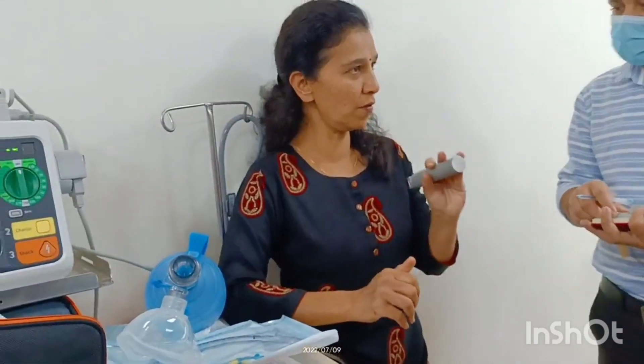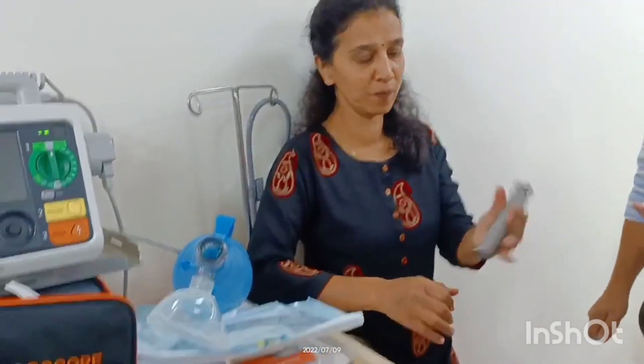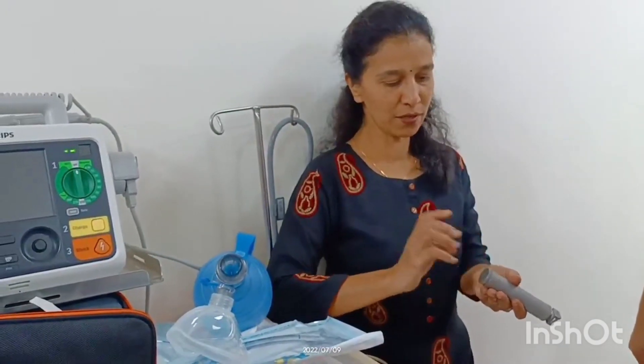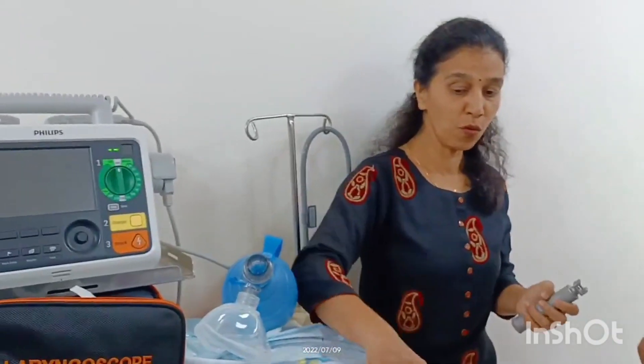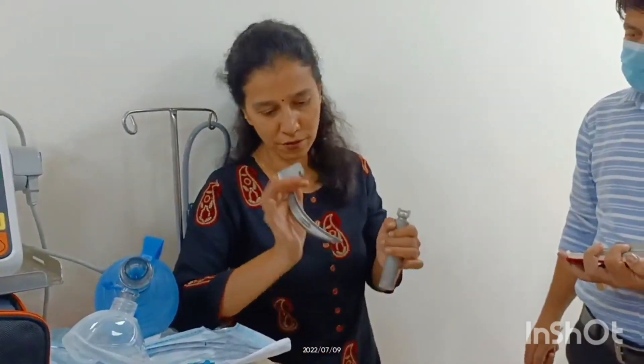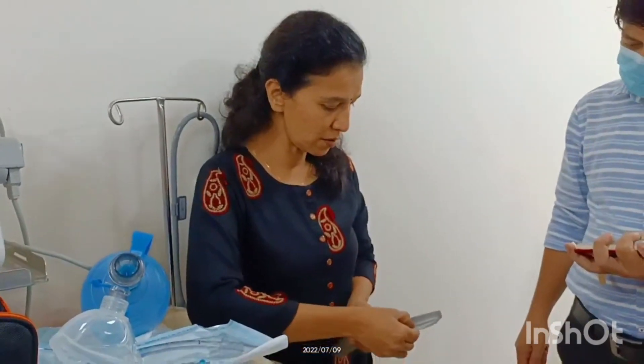The intubation set should always be ready. Every day, whoever comes on duty must first check the battery status — open the laryngoscope and check if the cell is in place. Even though the crash cart is locked, the scope must be checked daily. If there is no light, you will lose the patient because you cannot intubate without the light.